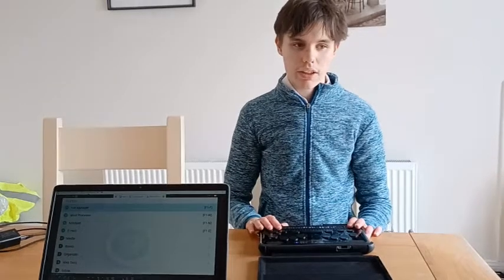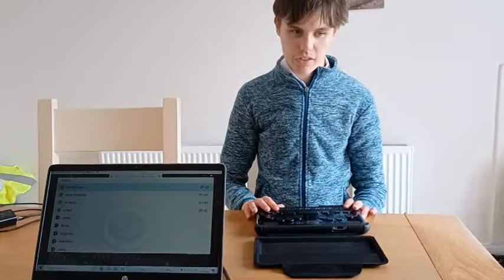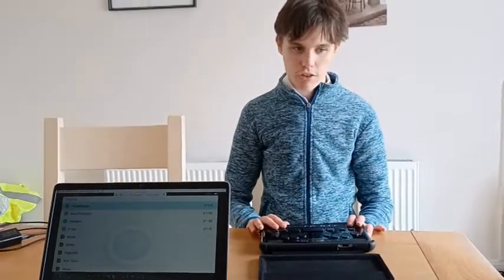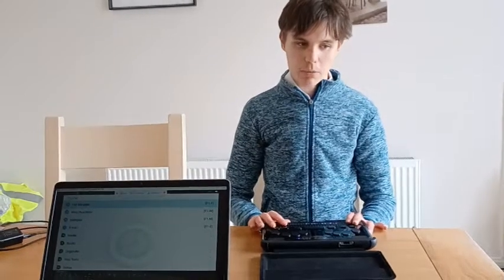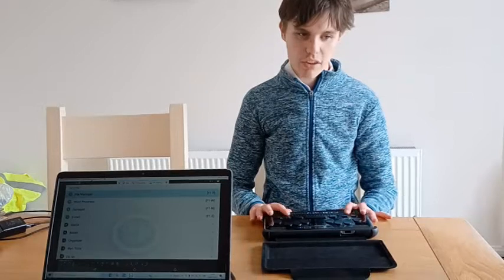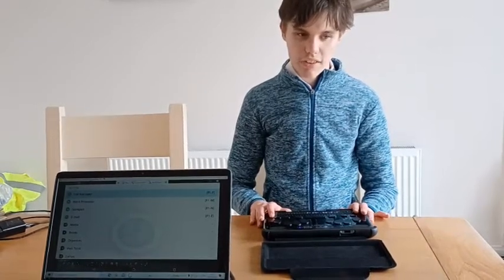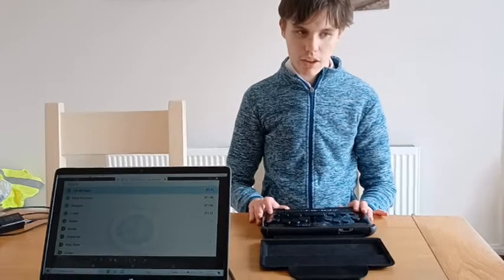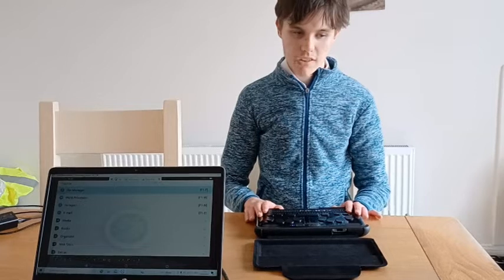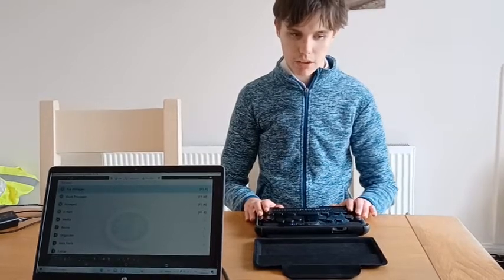Hi everyone, in this podcast we'll be talking about the different aspects of languages on the Braille Sense 6. I'll be talking about how to change the Braille code, using different voices on the Braille Sense 6, downloading new voices, as well as creating language profiles, which I'll get to later in the podcast. But basically they make it really easy to switch language and Braille code.